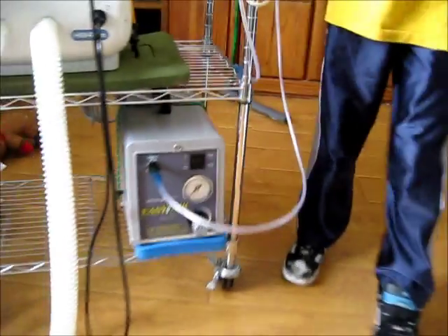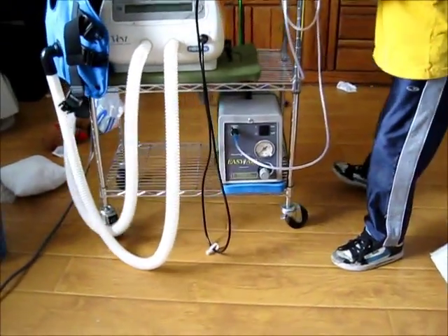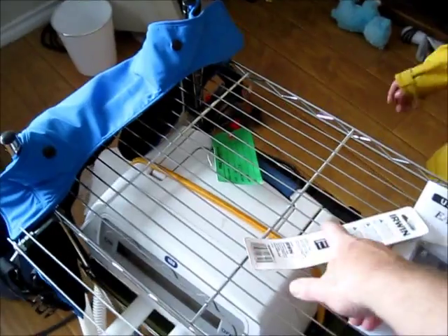Now the basic thing here is the wheel — show them how it moves, Michael. See how it moves; it's great on our floors because we've got the pergo or laminate flooring. And in essence, what you're going to need to do is buy the cart for $20.